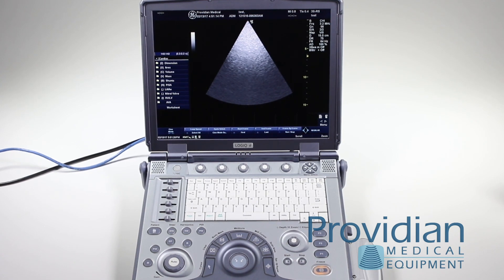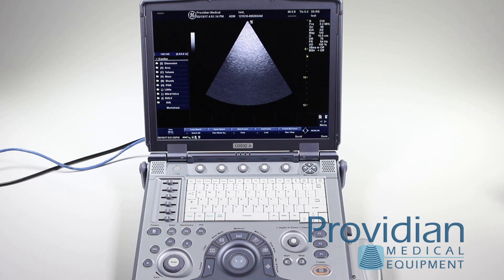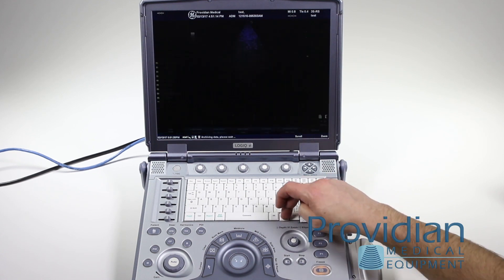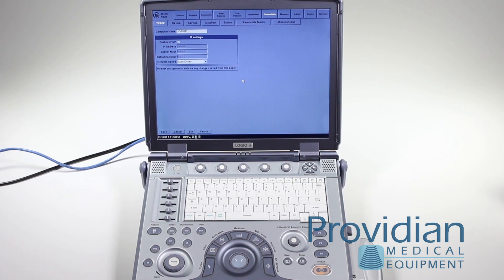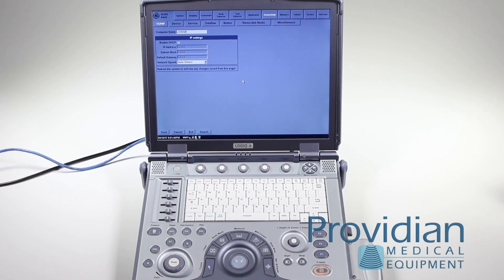Once you have that, connect your system to the network using the Ethernet cable and then click on the utility key. This is one of the most unintuitive setups of all ultrasound machines, and most people do struggle with it. It's the most common system we have problems with for connectivity because it's simply not that intuitive, so we'll walk through it.